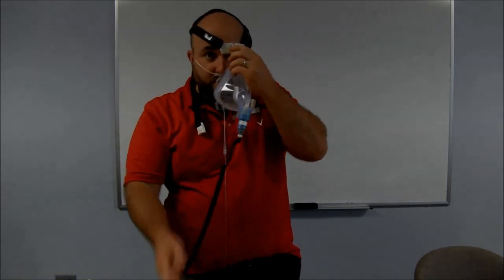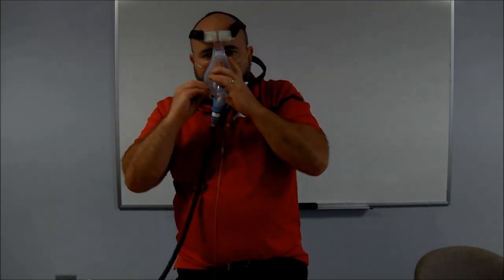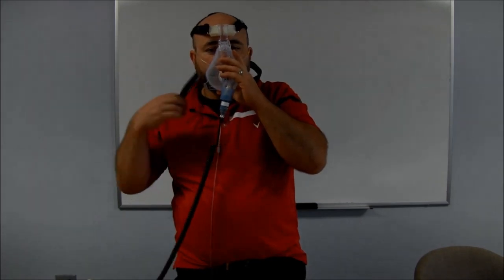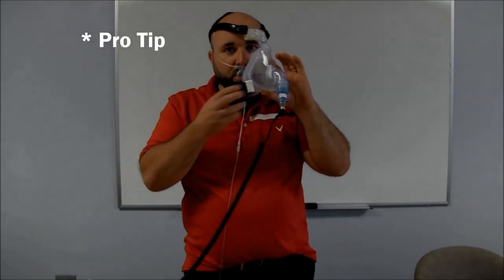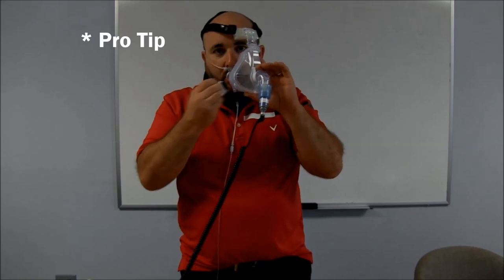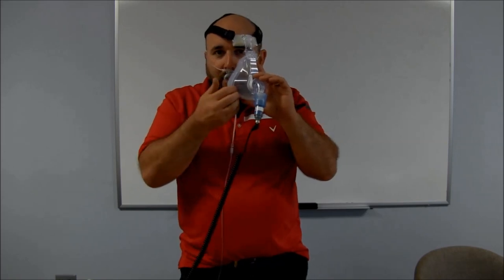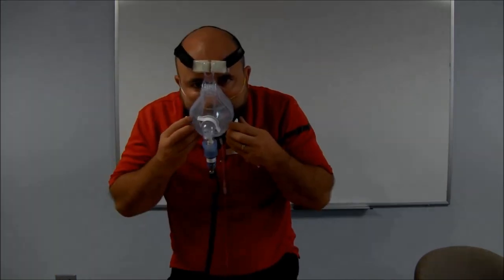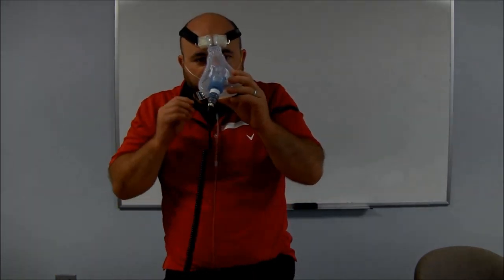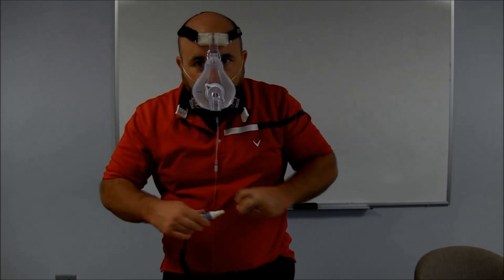I don't have to take my glasses off, but I'm going to for this situation. A really nice thing to do — just on a side note — when you're setting these up with a patient, make sure you show them, after you set it up, how to open it up. Because if you ever wore one before, you kind of feel like you're trapped. So have them put their hand up here and show them how to eject these things — it'll help your patients quite a bit. Now I'm going to try something a little different here. I'm going to take this oxygen analyzer and stick it up into the mask with me — might get a better reading at that point.